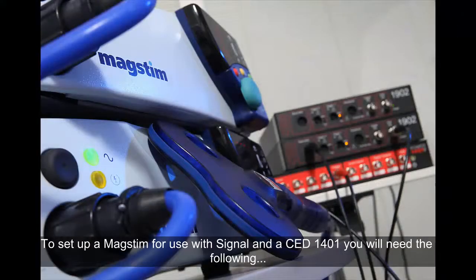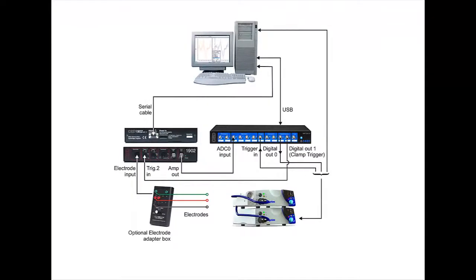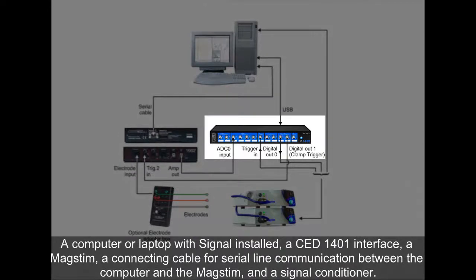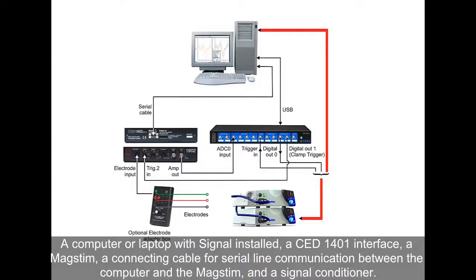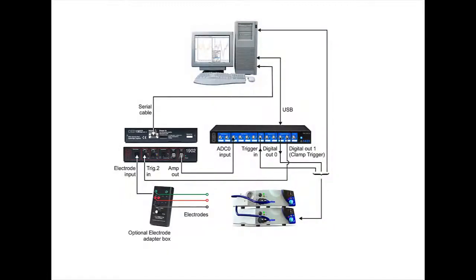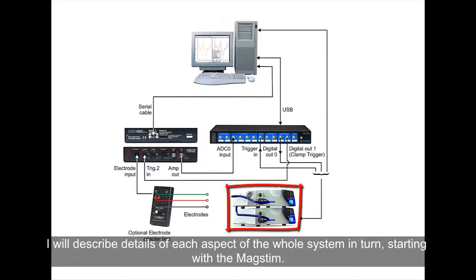To set up a MagStim for use with Signal and a CED1401, you will need the following: a computer or laptop with Signal installed, a CED1401 interface, a MagStim, a connecting cable for serial line communication between the computer and the MagStim, and a signal conditioner. I will describe details of each aspect of the whole system in turn, starting with the MagStim.